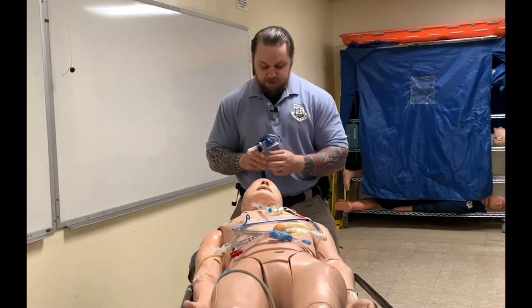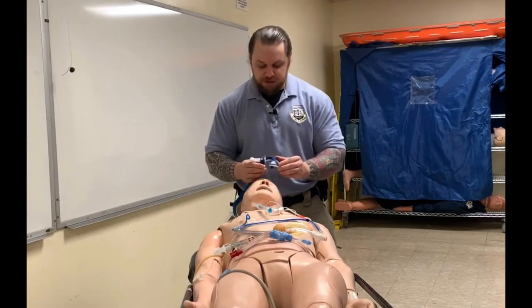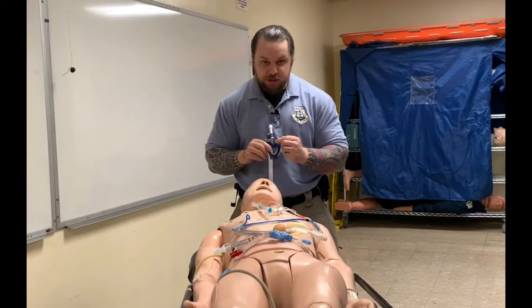As I said, this mouthpiece aperture should always face towards the patient's feet. The next part — if I turn this upside down it looks like a V — this is called the V-wedge, and we're going to place our tube into this position when we secure it.